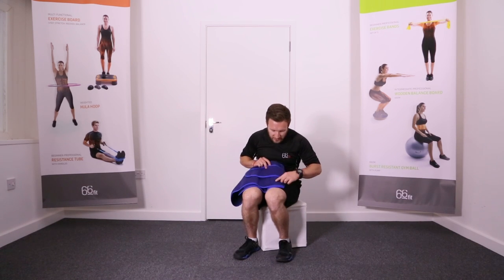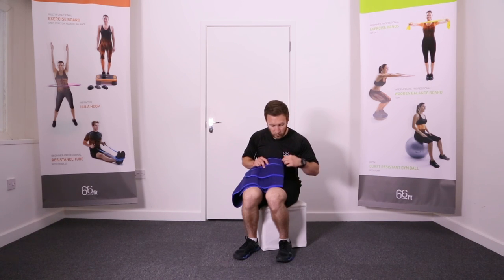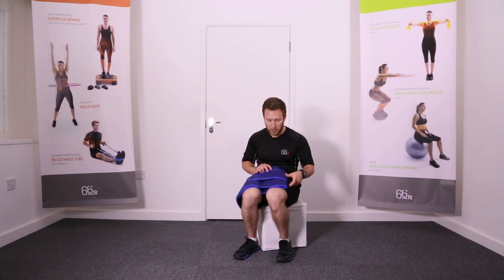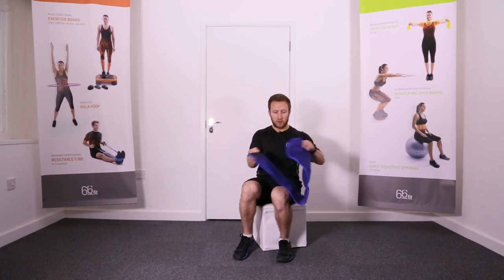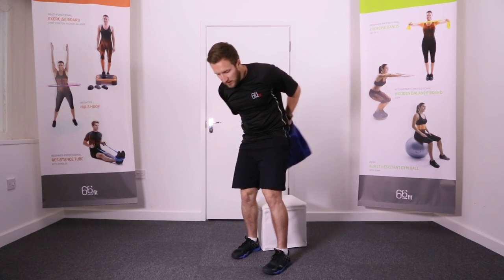You can see here on the back, in these stitched areas, this is where the actual braces are — these are rods that run through here and that's what's going to provide the extra support when you are wearing this. You've also got this extra attachment that's going to pull around tighter and hug you a little bit more when you've actually got the back brace on.